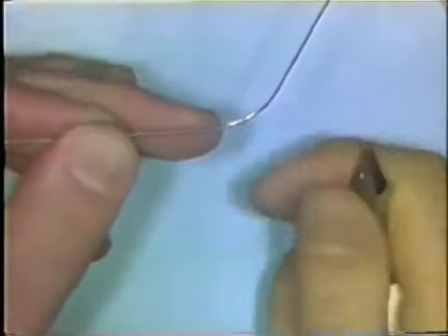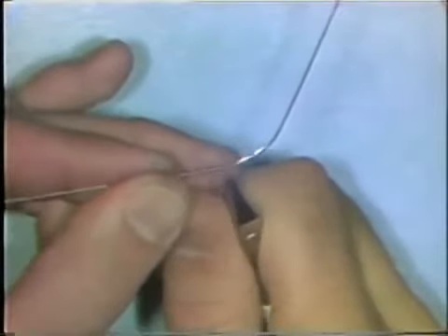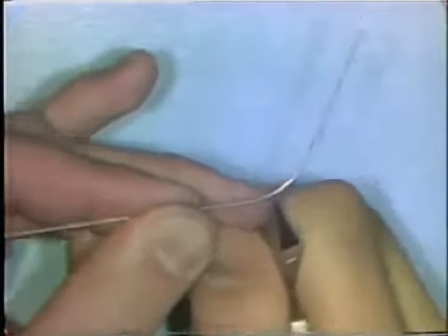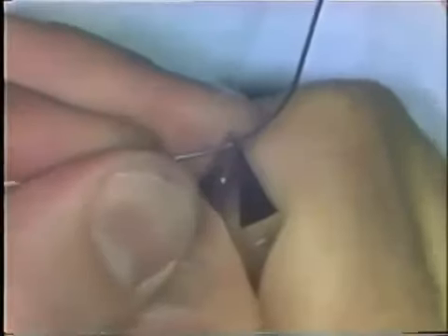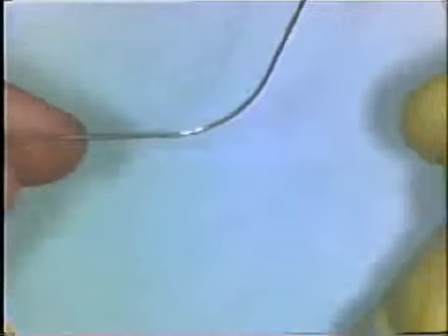To increase the curvature in an area that's been flattened too much — where there's curvature on either side but a little flat section through the middle — you place the wire back in the beaks of the plier and make two or three small bends very close together. This will take care of those overly flat areas.